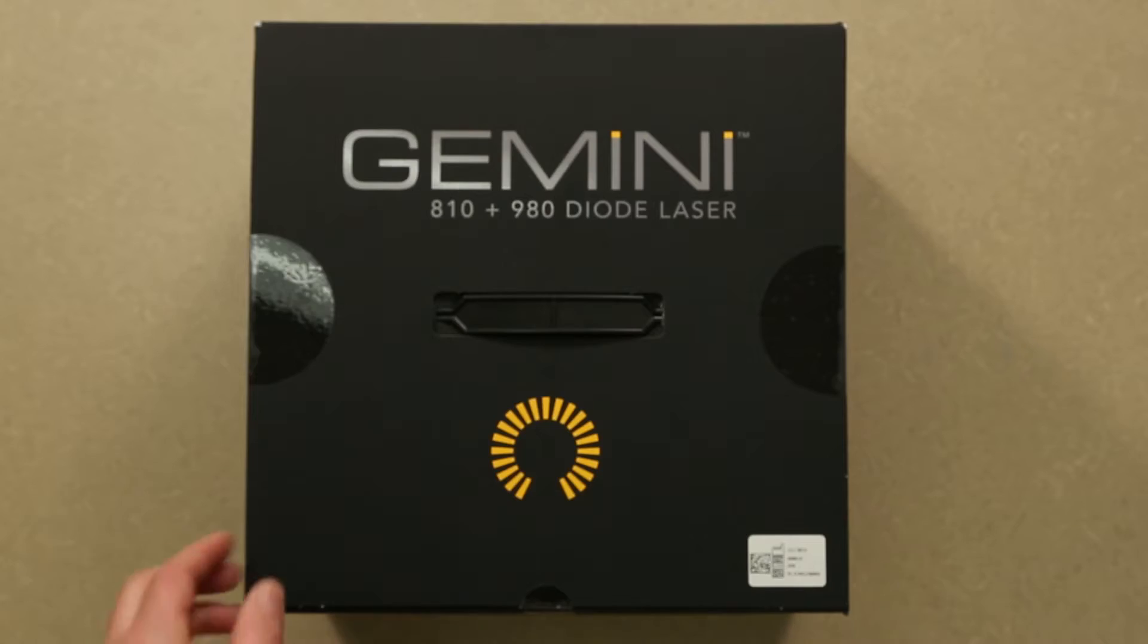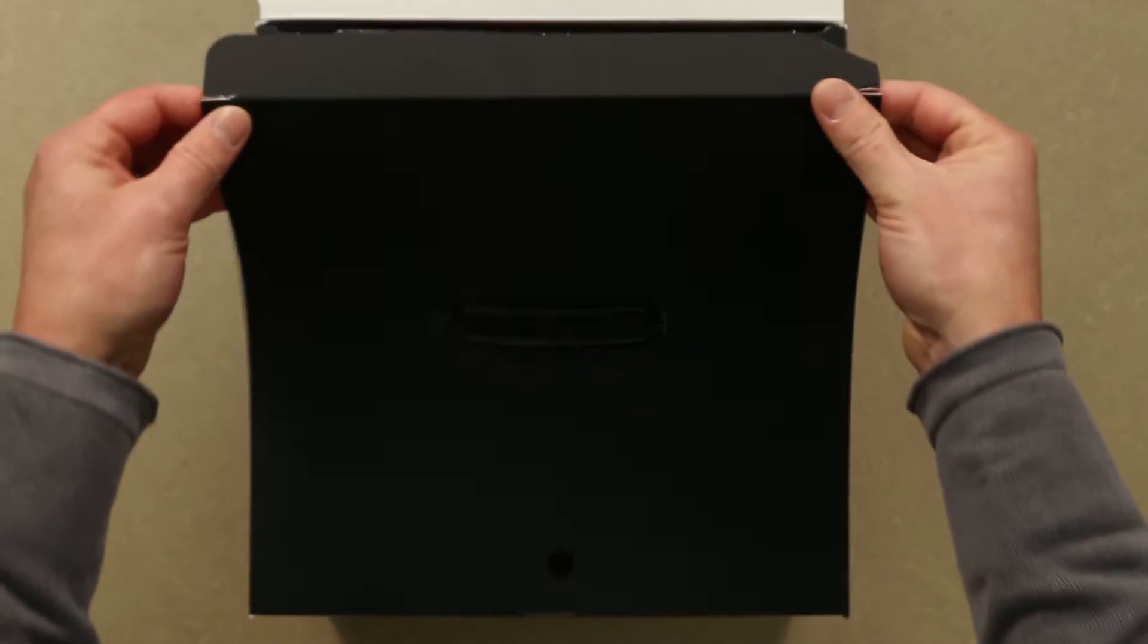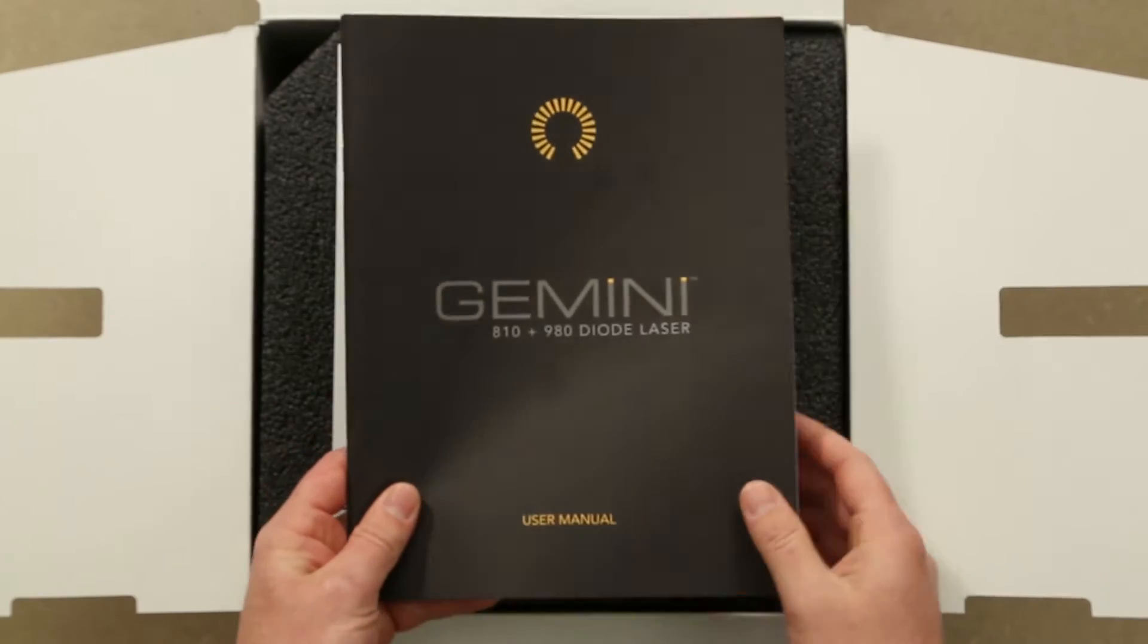The Gemini 810 and 980 Diode Soft Tissue Laser Kit comes with everything you need to get started. Please read thoroughly the instructions for use booklet contained in the kit before proceeding.